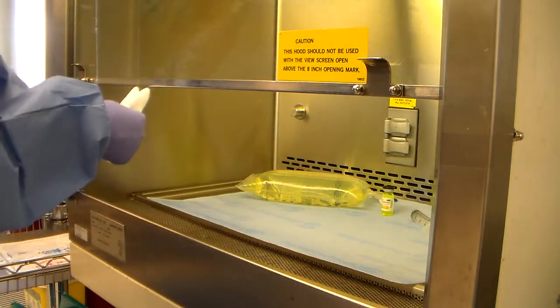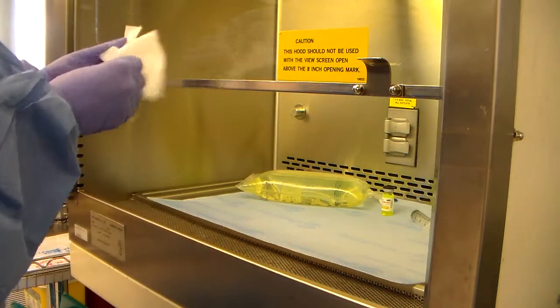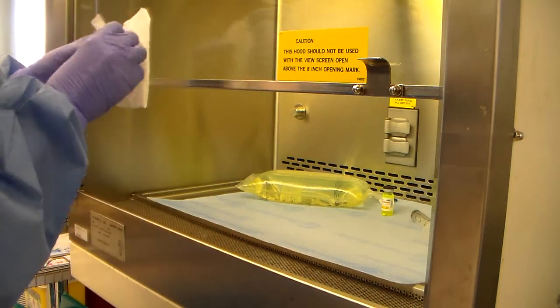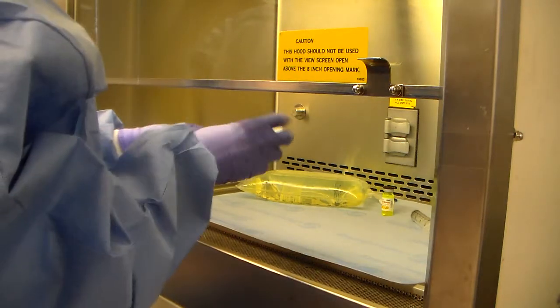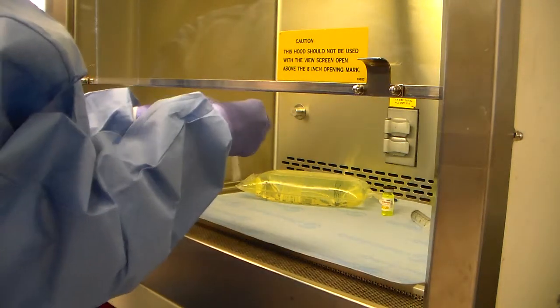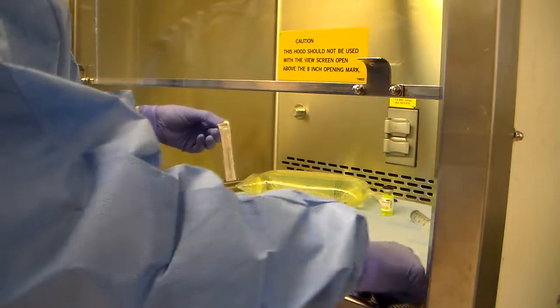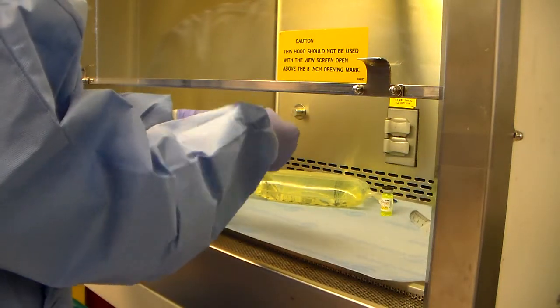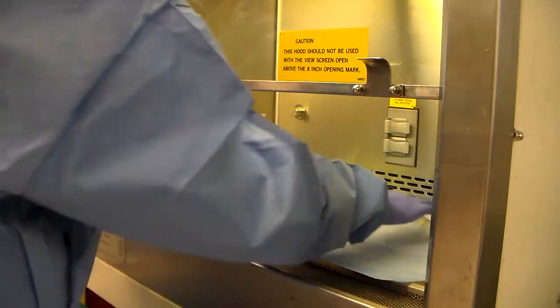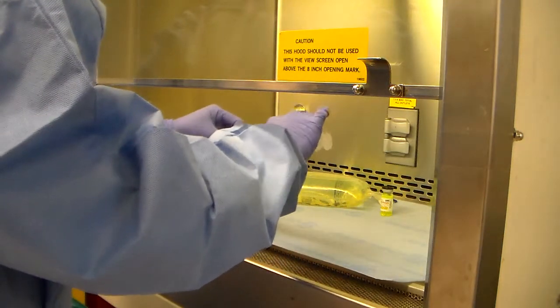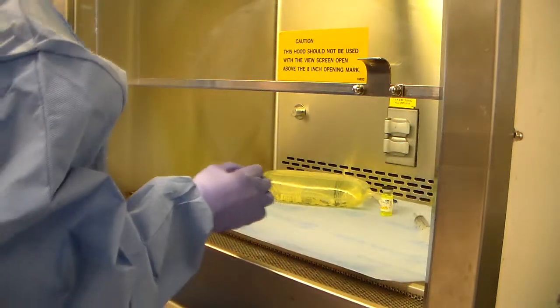The next thing that I'm going to wipe down is my needle. Same thing. I'm going to go ahead and open it right away. Notice that I'm not all the way in the hood. I'm basically where this pre-filter is in the front. Grab your syringe, attach it, set it down.